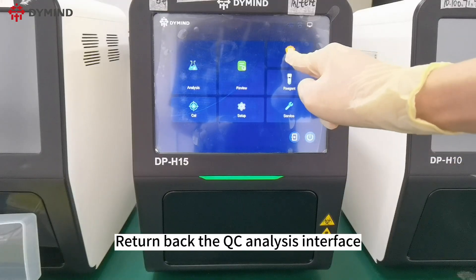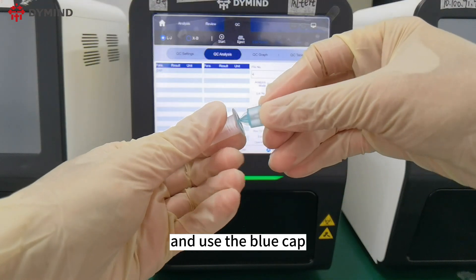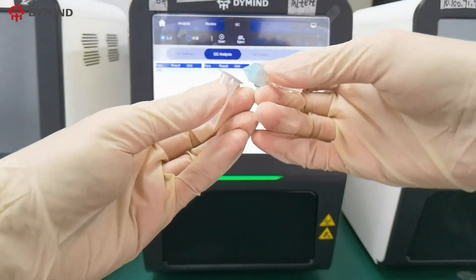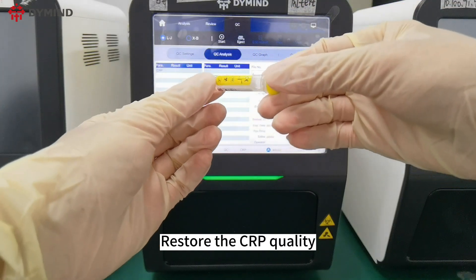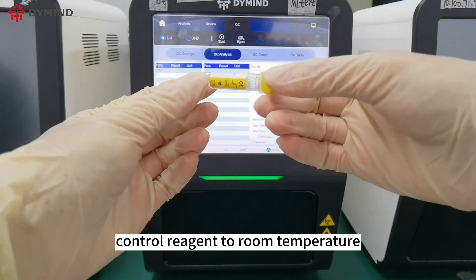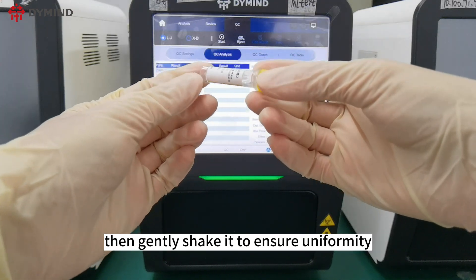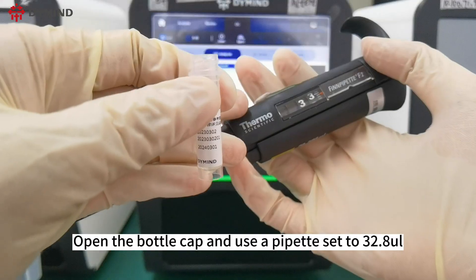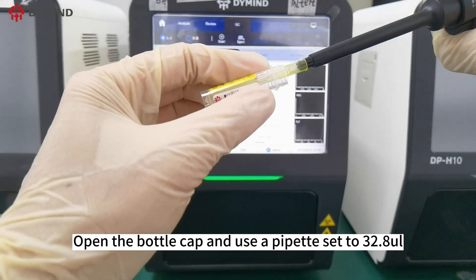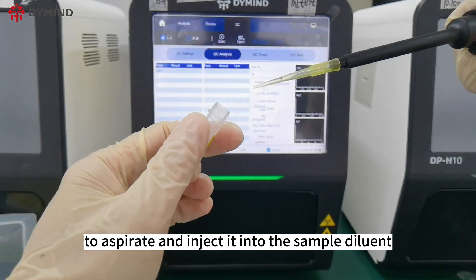Return to the QC Analysis interface and use the blue cap to pierce the seal of the sample diluent. Restore the CRP quality control reagent to room temperature, then gently shake it to ensure uniformity. Open the bottle cap and use a pipette set to 32.8 microliters to aspirate and inject it into the sample diluent.